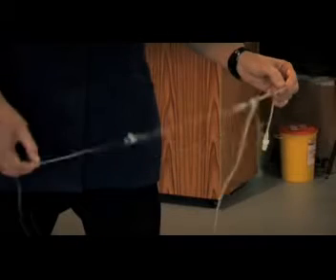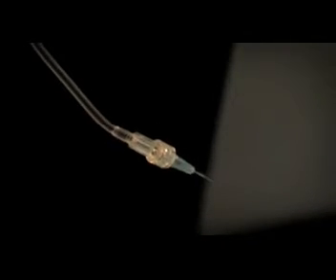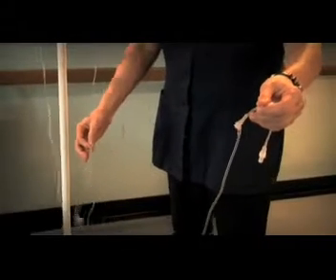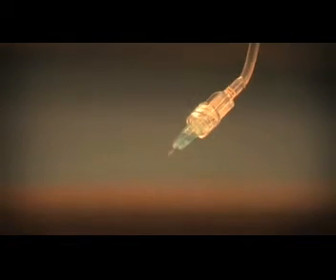This can cause risks to patients as administration of medication or fluids may be accidentally disconnected from their drip. If the needle pulls out, there is also a risk of needle stick injuries to anyone nearby. If the drip line is snagged or tugged, the needle may pull out sharply, causing even greater risk.